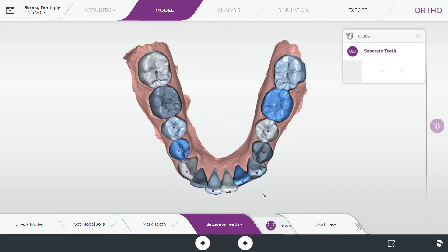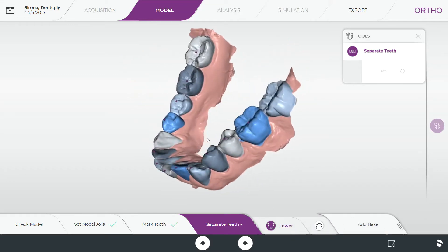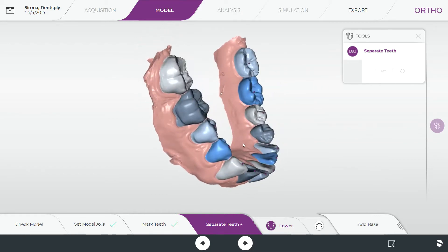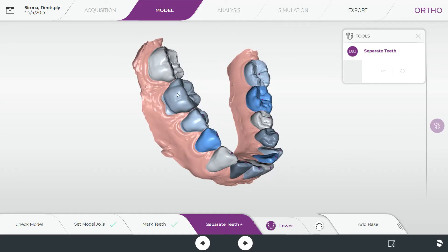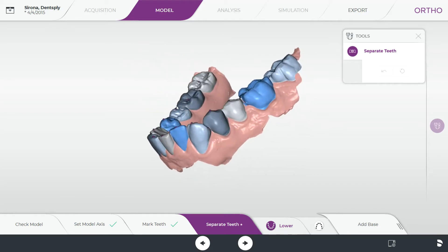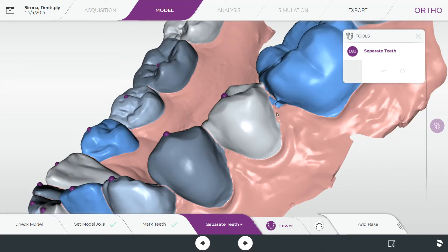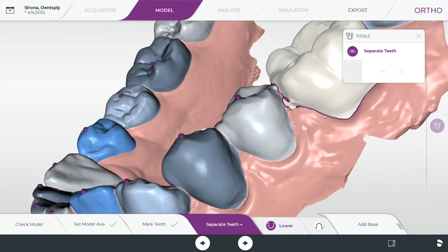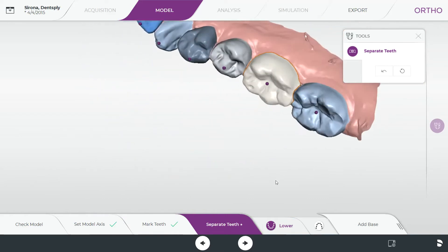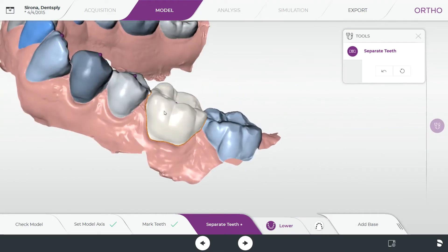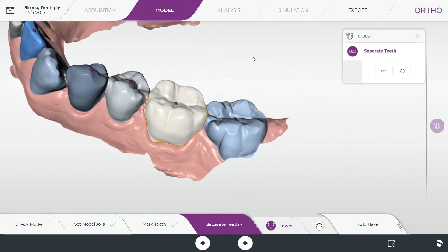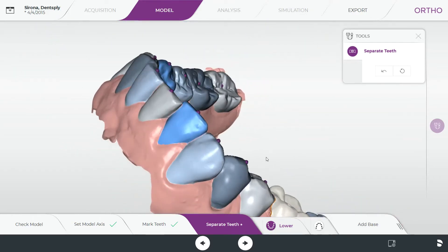The next step is separating the teeth. The software does a pretty good job of this, but there are a few tips and tricks. Roll around the model making sure there's a clear definition of where each tooth is. There may be spots where you see a little blue where it should be gingiva. Click on that tooth to get the orange line around it — when you hover it turns purple. Click and hold with the left button and drag that line to where you want, then let go and it will redraw. Spend a minute or two making sure the separations look good, as this will help with analysis and most importantly the simulation.